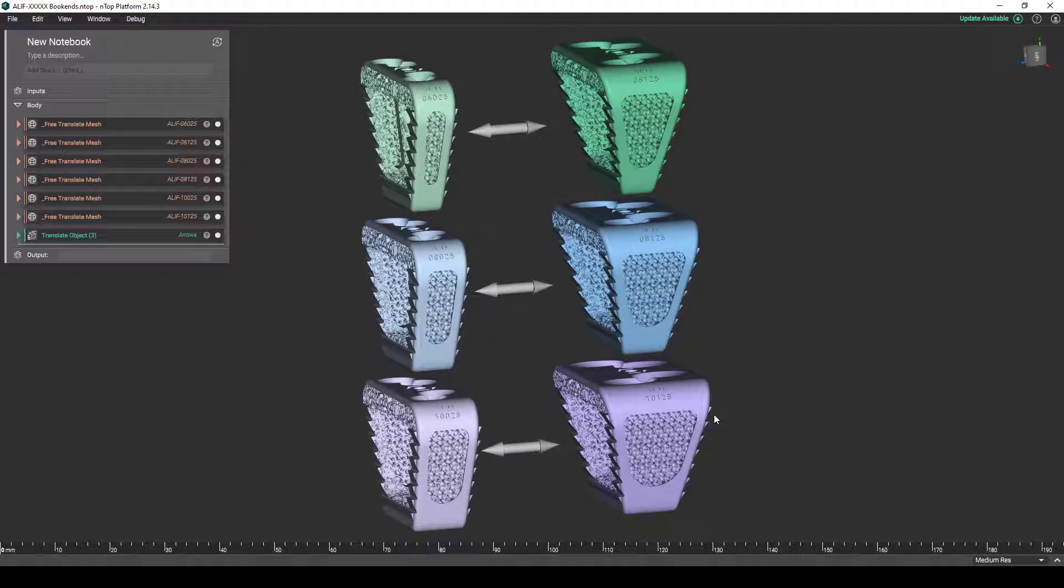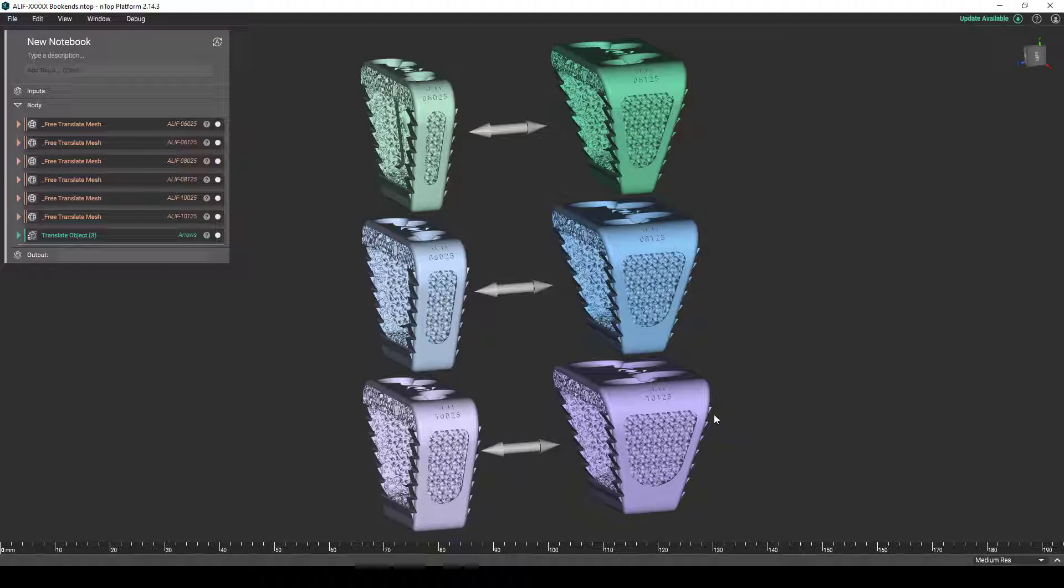Obviously, what I've shown here today is really not intended as a be-all-end-all solution when it comes to designing these osseo-integrative lattices for your larger product families. There are many ways to go about this within nTop platform alone, but this has just been a showcase of what nTop can offer as a design platform to create these automated yet nuanced solutions that work for your specific applications and serve your specific needs, all while supporting a more traceable process.